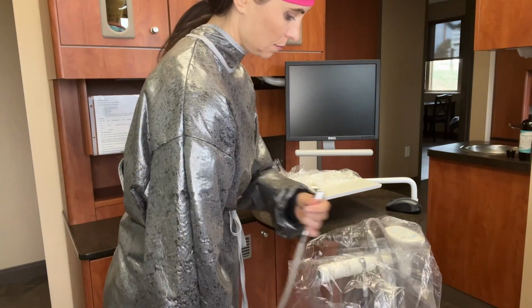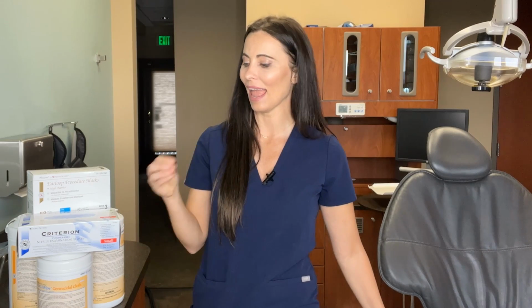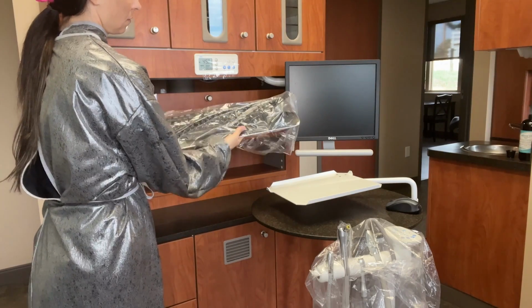Once you're done with the patient, you can remove the barrier without contaminating the surface and save time on the cleaning and disinfecting stage of the operatory turnover. So this helps to reduce chemicals used in your operatory and the amount of time spent on cleaning and disinfecting every clinical surface. Keep in mind, many electronics like keyboards and mice cannot tolerate the cleaning and disinfecting process and must be covered with barrier wraps.